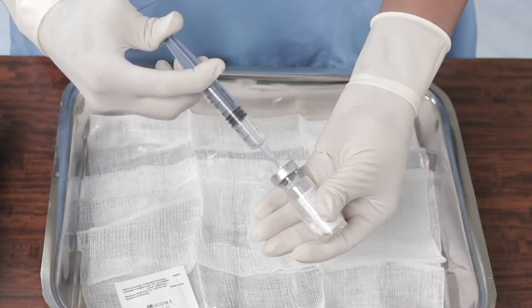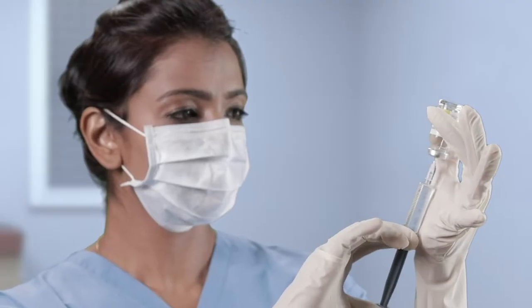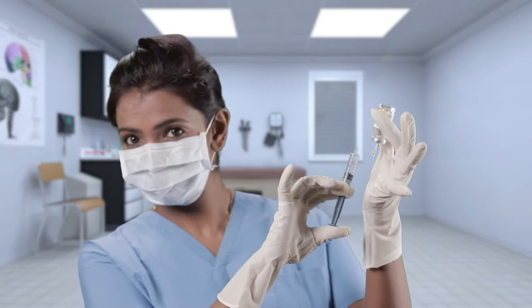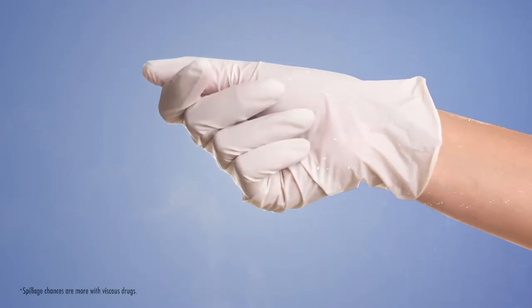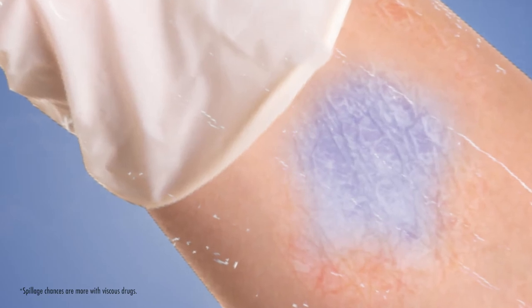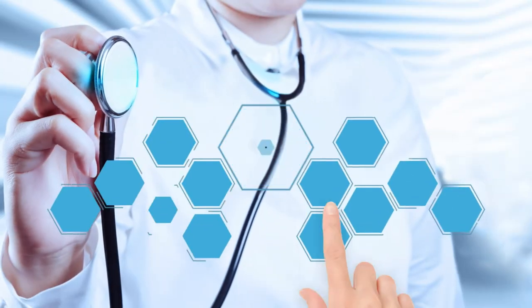It was observed that spillage can happen from a luer slip syringe at the time of reconstitution and aspiration, thus potentially exposing the nurse even though she may be wearing protective gear. Exposure to these drugs may have dangerous consequences because some of them are highly reactive and threatening.